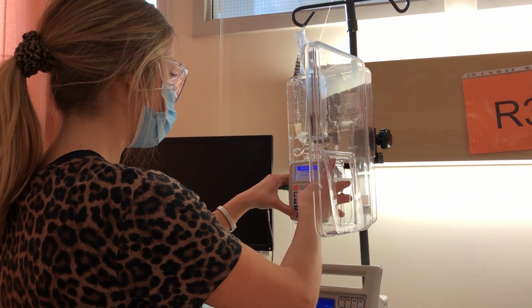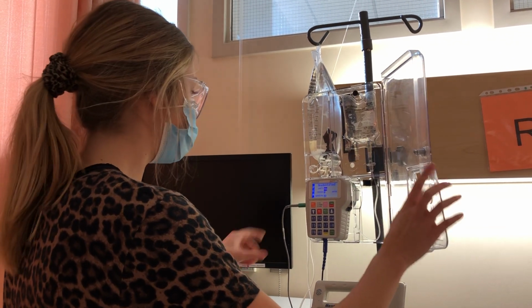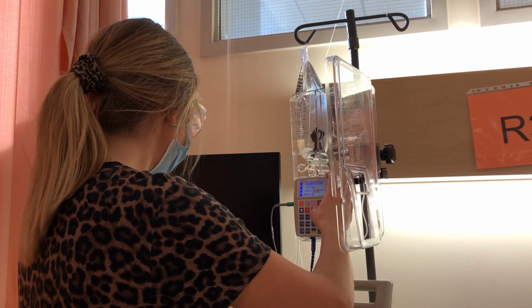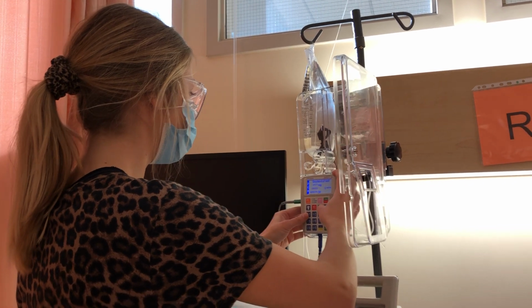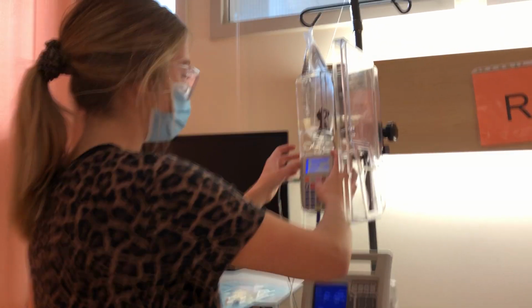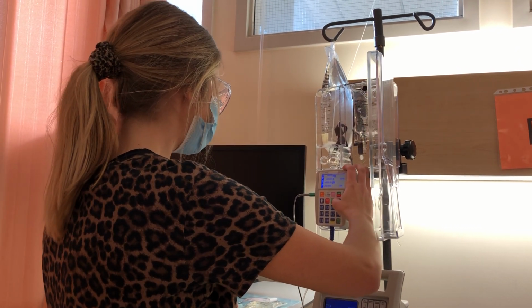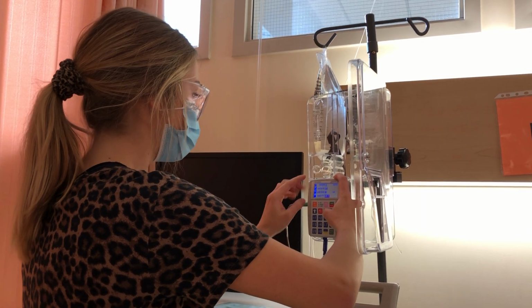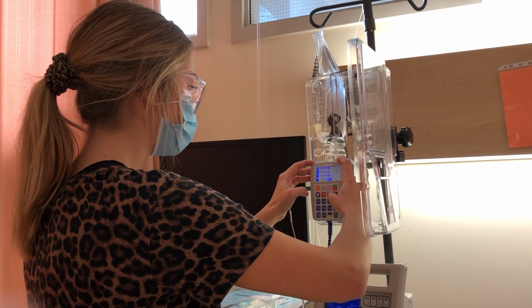Okay, so my units here, I have milligram per ml, so 1 milligram per ml is the unit, that's good. The concentration in my bag is 1 milligram per ml, so I want to put 1 milligram per ml, yes. The administration route is IV, my medication I have here. The loading dose, there is no loading dose, I'm going to do 0. The med limits are going to stay off for safety. Yes, I'm going to hit next.